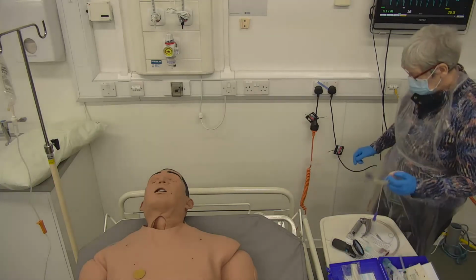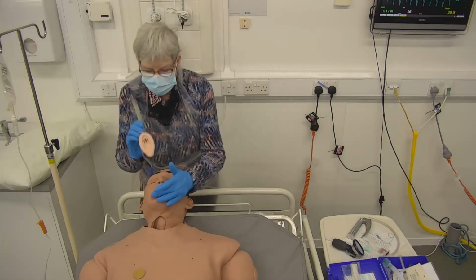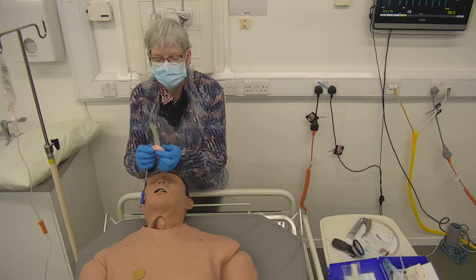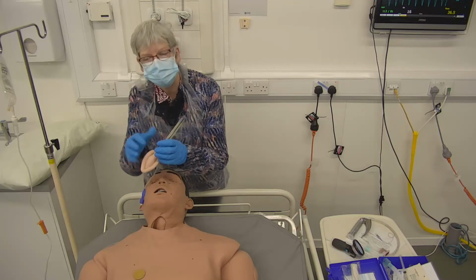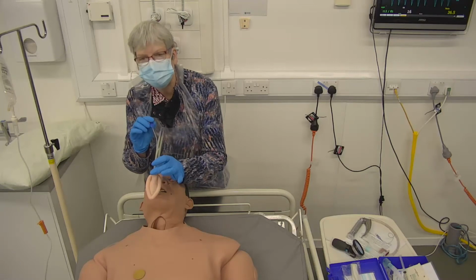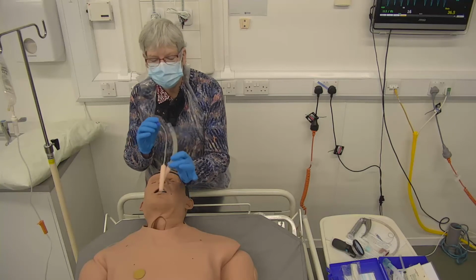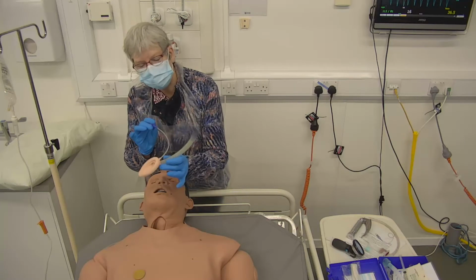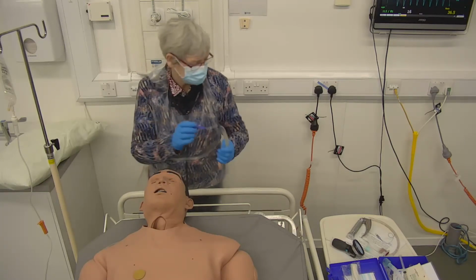Sometimes in theatre, rather than having a full ET tube, what you do is you slide this, using a laryngoscope, you slide this. This is a laryngeal mask. That just sits in the large airway over the larynx, so it doesn't go all the way into the trachea. And this is a way in which you can ventilate people or support their ventilation relatively lightly. So somebody who's having relatively minor surgery, who you don't want to knock out, sedate too much, you might use one of these, a laryngeal mask.